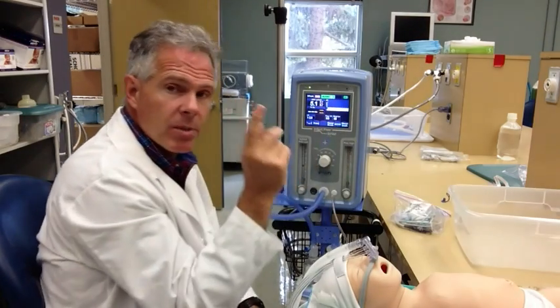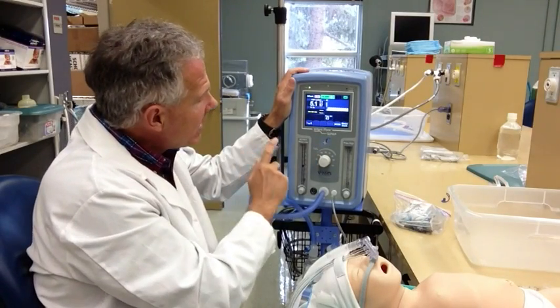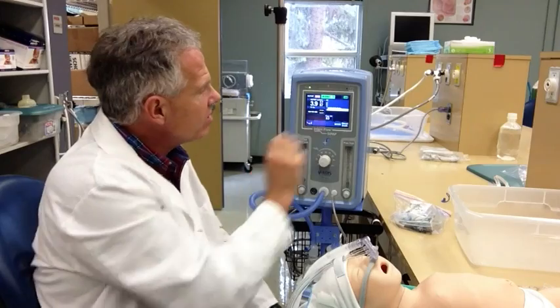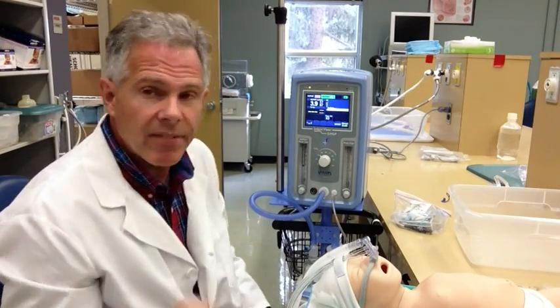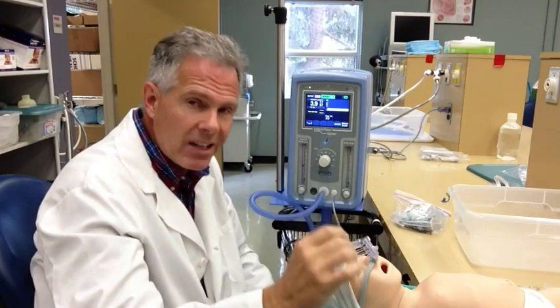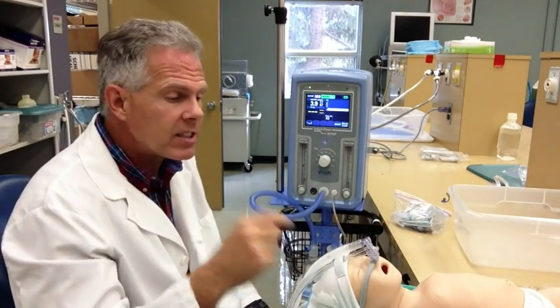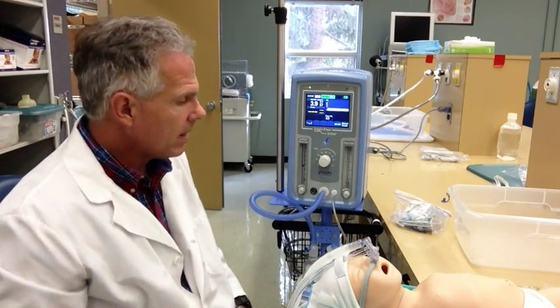If I want to go back and change the mode again, I'm going to use mode control and switch back to just straight nasal CPAP. I confirm that by selecting nasal CPAP, and now you'll notice I'm just getting a nice, even, continuous CPAP. That's actually one of the huge advantages about this mechanical ventilator - it gives very, very effective nasal CPAP. Even when the patient's breathing in and out, it synchronizes very well with them, and you don't see much fluctuation in the CPAP pressures delivered at the back of the pharynx.